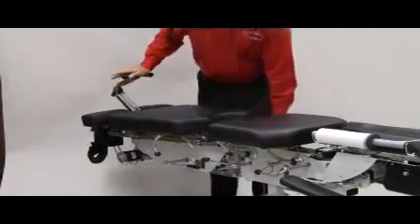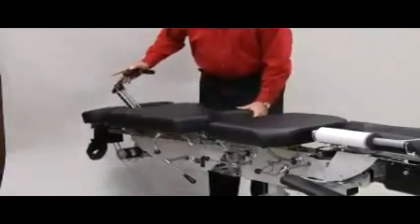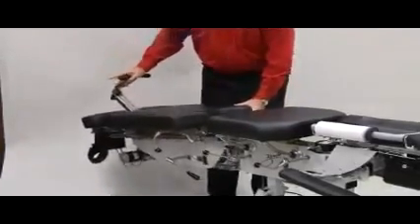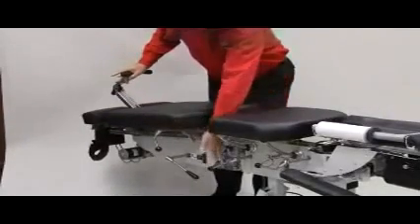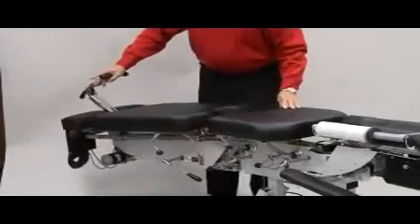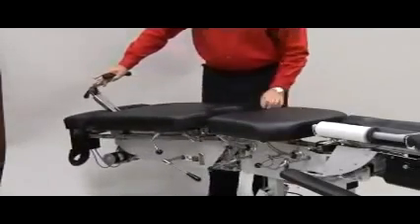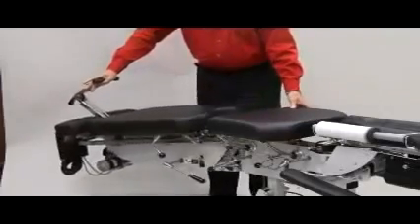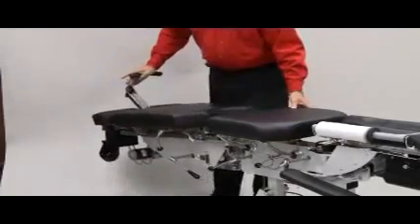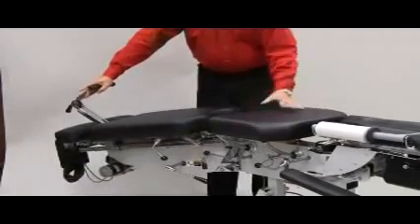This handle is the flexion lock. As you can see, the table will go into flexion and extension quite easily. Also standard is the locking lateral system, which allows the table to go sideways, combined with the flexion distraction handle that provides circumduction as a standard feature of the table. It can be locked in any position for other protocols.